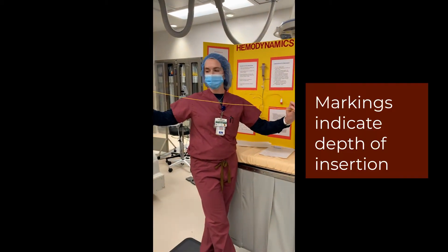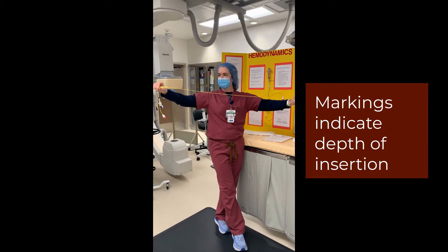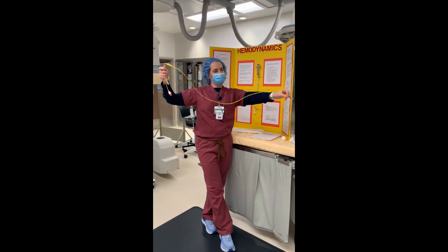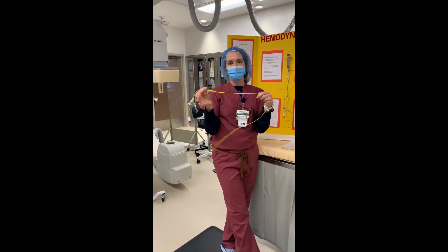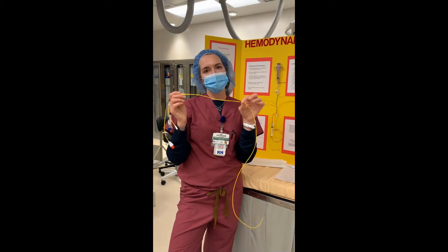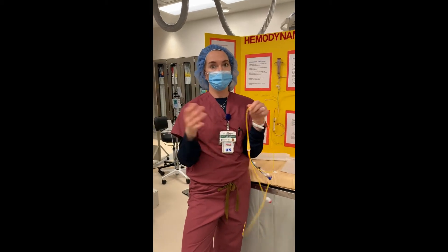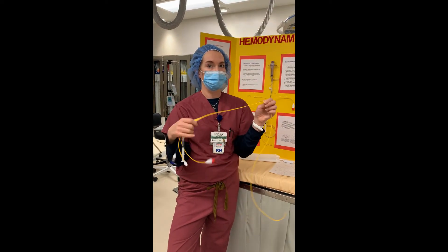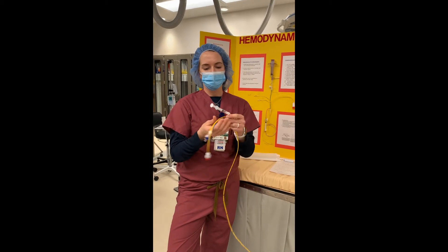So let's talk about the PA catheter. You can see it is yellow; it has marks on it that indicate the depth of insertion. All of this internal portion is what we place here in the cath lab. What you will see up in the ICU is this external part of the catheter, coming outside of a sheath — a sheath is just a fancy word for an IV — coming out of the hemostatic valve of the sheath.